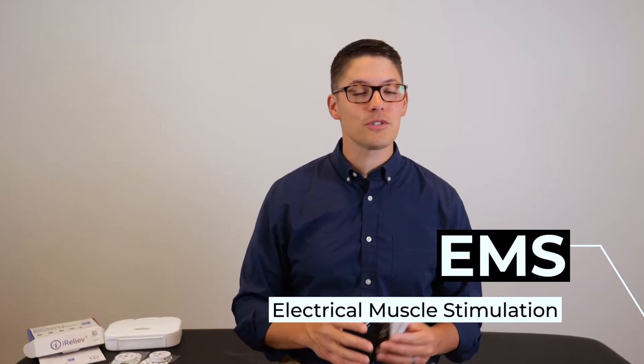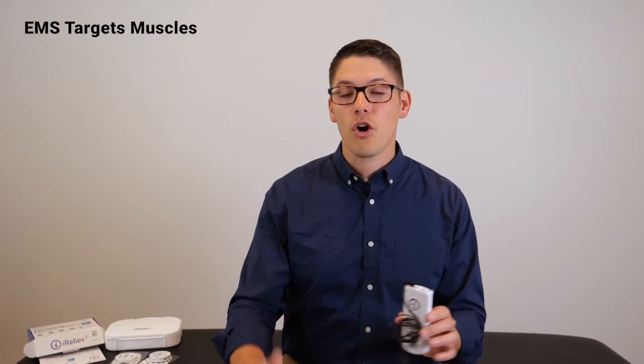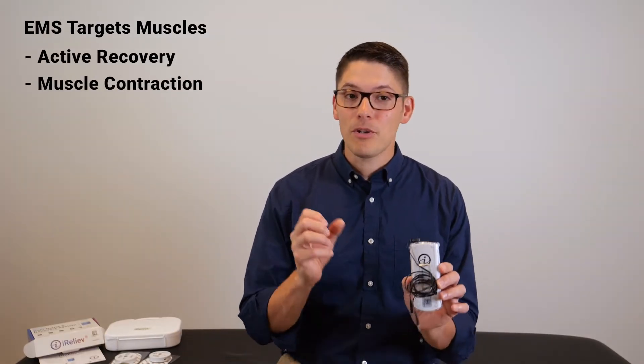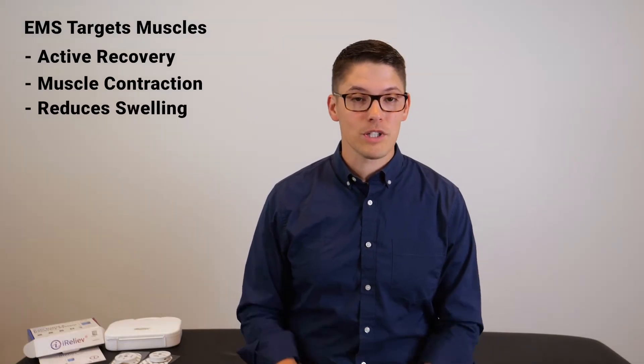Now that explains what the TENS unit does in general, and I'll show you how to use the machine in a second, but let's compare TENS to EMS, because some units like this one right here give you an option for both. EMS stands for electrical muscle stimulation, and just like TENS, it delivers an electrical impulse, but instead of pulsating at just the skin level, EMS settings are meant for targeting your muscles to help with active recovery or to stimulate a muscle contraction, which can help to reduce swelling or even to promote muscle recovery.